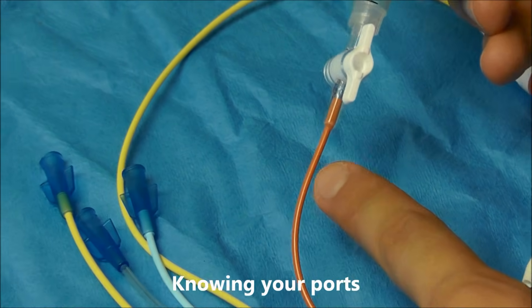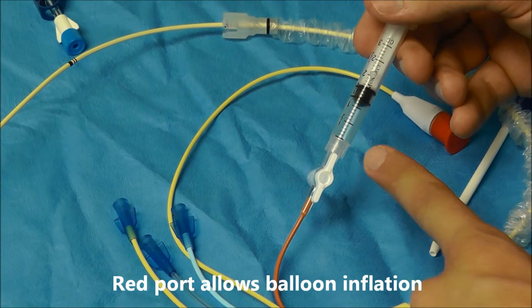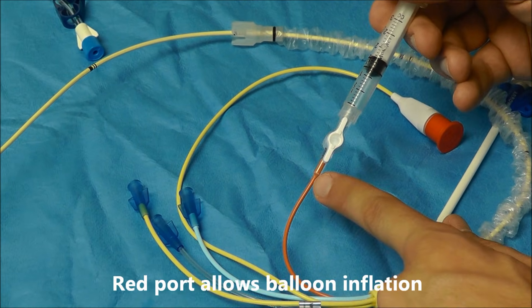The balloon port is this red port. And so if you want to inflate the balloon, you just connect your syringe to this red port and inflate.